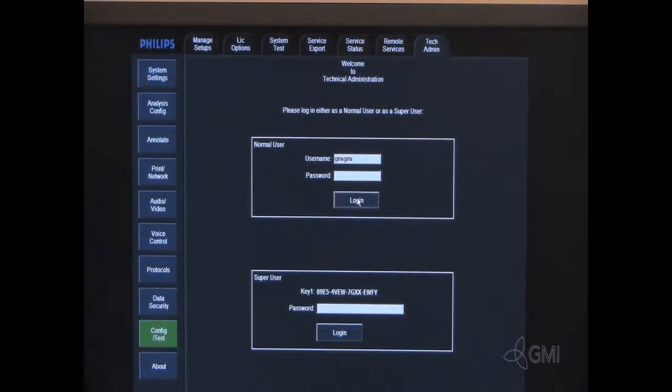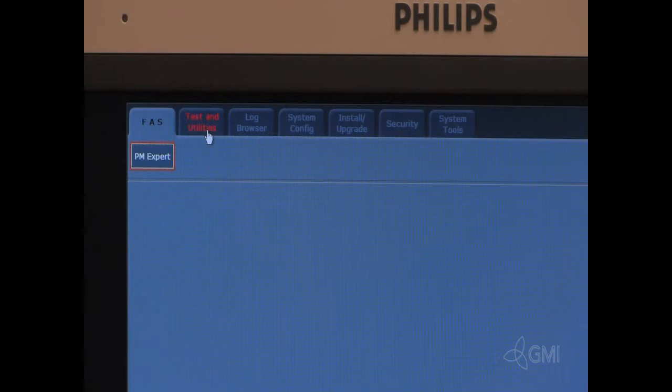Enter the tech admin username and password. Select test and utilities.